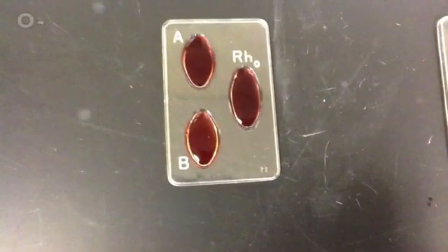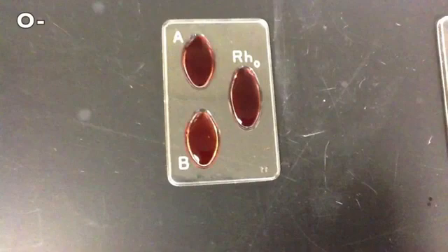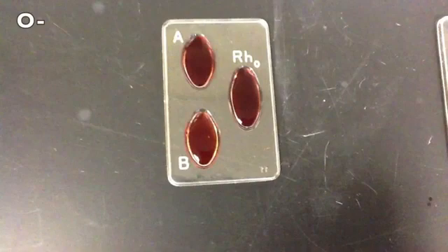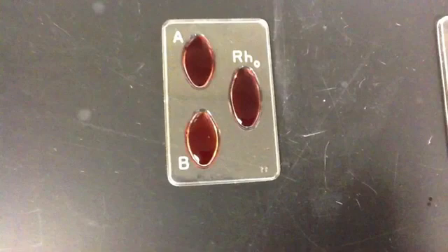This person, on the other hand, is O-negative, denoted by the fact that no agglutination occurs in the A, B, or Rh-well, meaning that none of these antigens are present on this person's red blood cells.